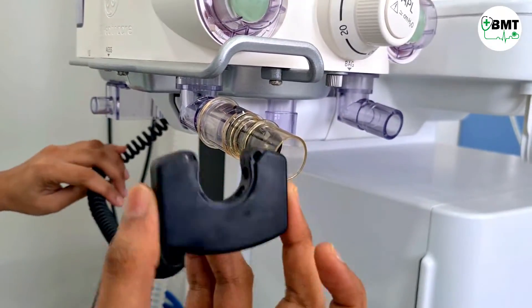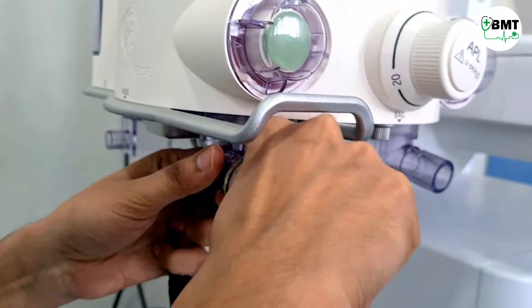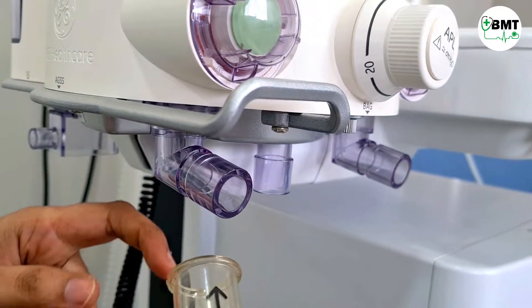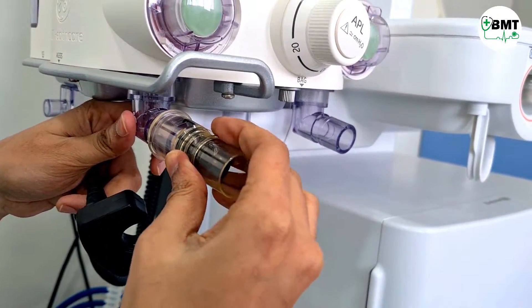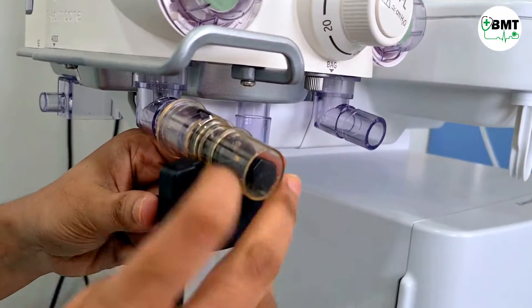This is the sensor and this is the connector. The arrow mark should be towards the machine. Then connect it over here.